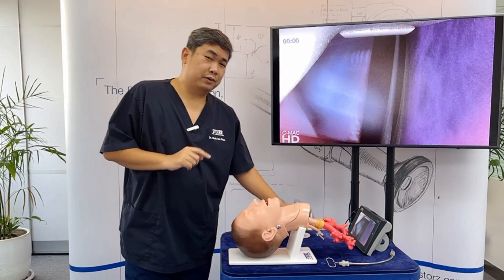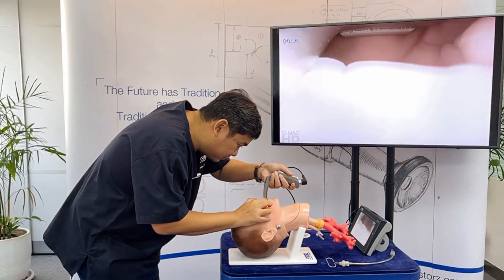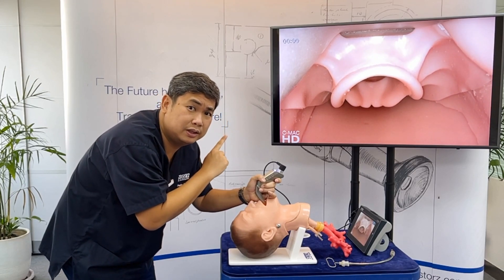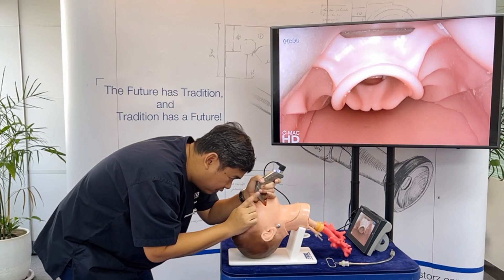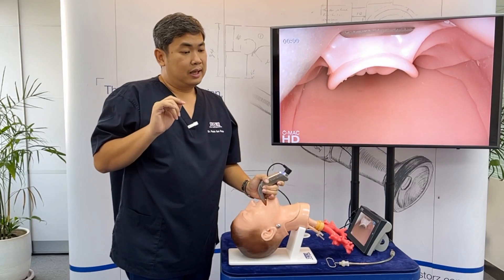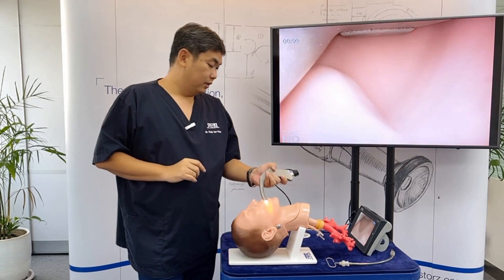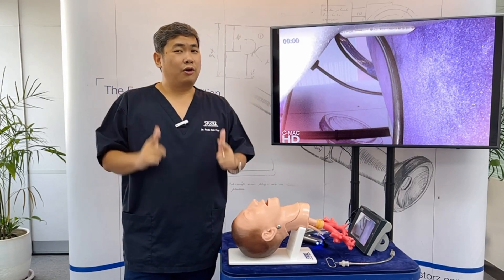Ask a participant to perform direct laryngoscopy using a Macintosh blade. Once you can see the vocal cords on the screen and the participant is still having a hard time finding them, ask if they can see it. If they say no, illustrate on the screen that the rest of the group can already see the vocal cords. That's the first advantage of video laryngoscopy — it offers a better view.